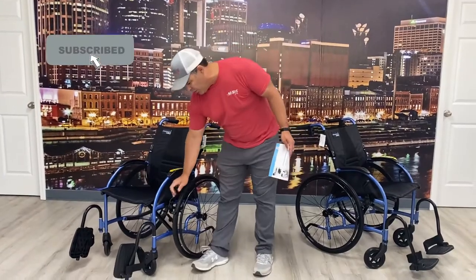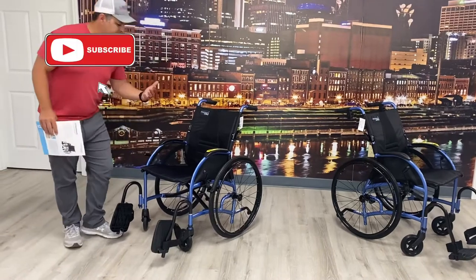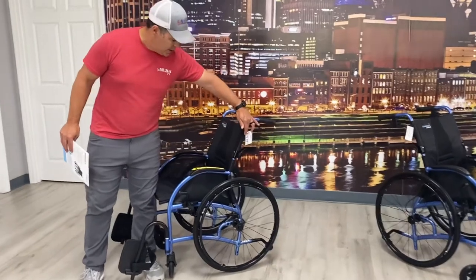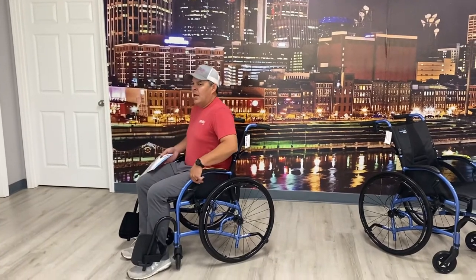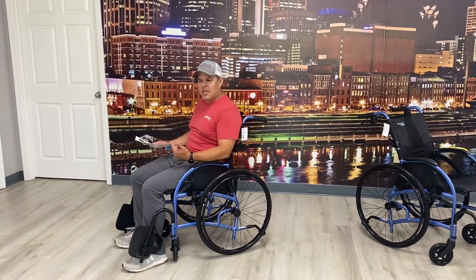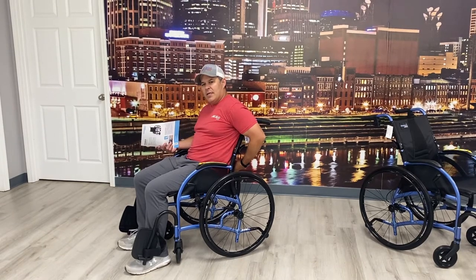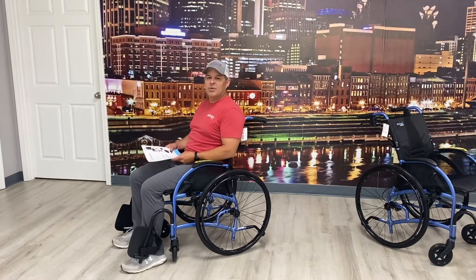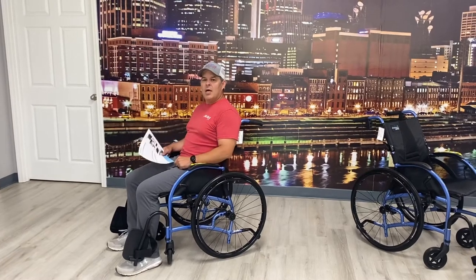On this one we've got your wheel locks and your leg rest, but the biggest difference is you'll notice the curvature of the backrest. What's nice about that is when I sit down in the chair I automatically lean back. A lot of people have a tendency to slouch, and with this backrest it hits the lumbar and automatically makes you sit up right.